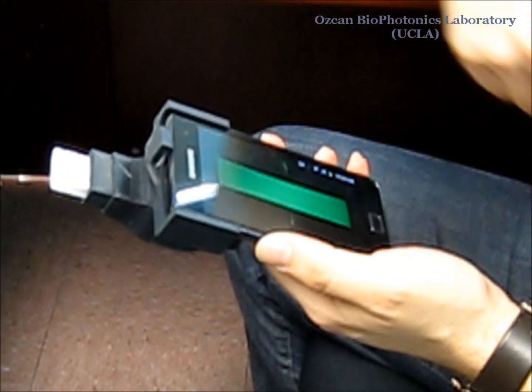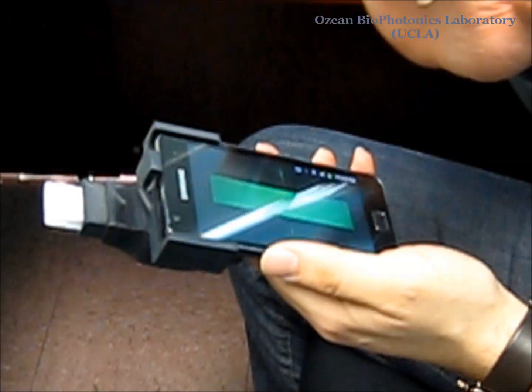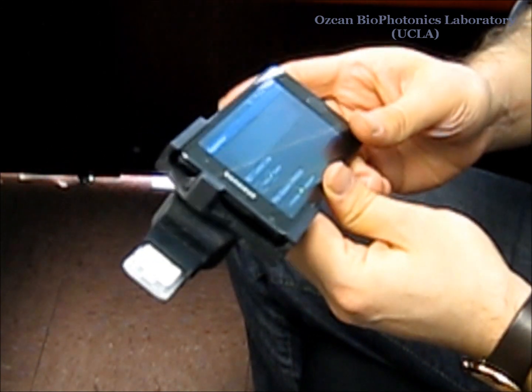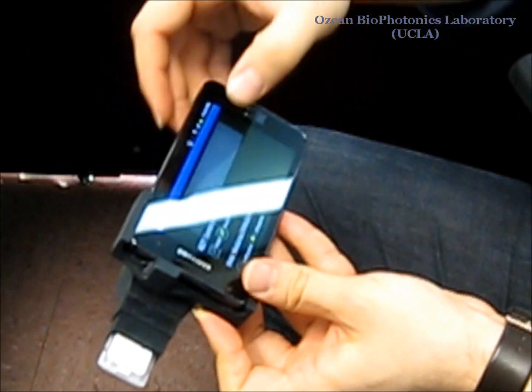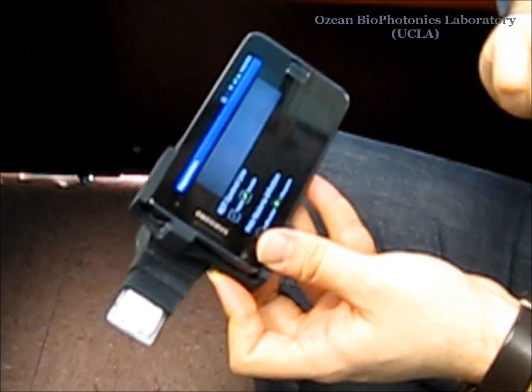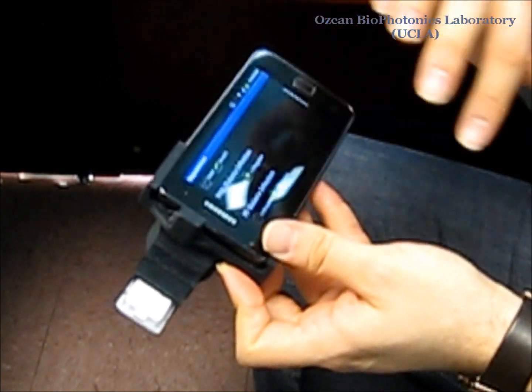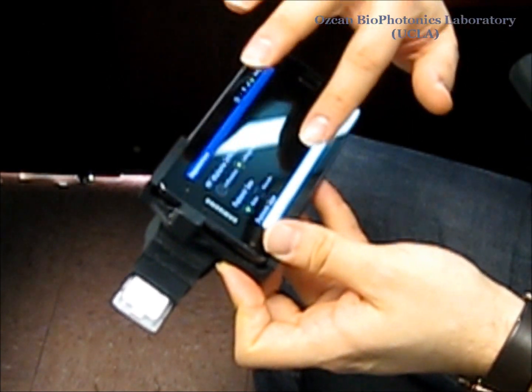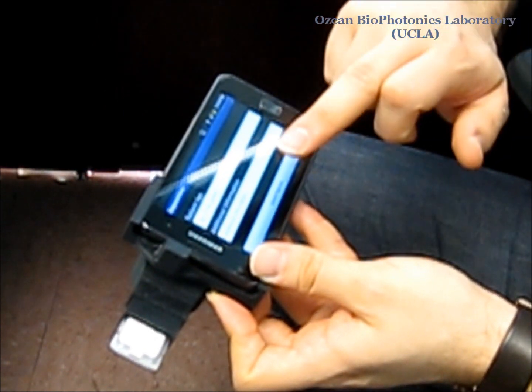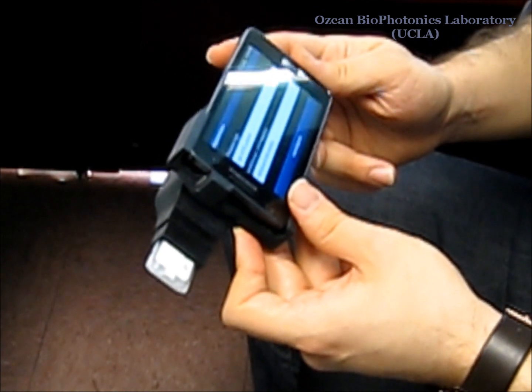You will see an enlarged portion of the test illuminated using this attachment. All you need to do is capture an image by pressing on it, which then quickly analyzes the captured image to understand, based on the strips changing color, whether the rapid diagnostic test is valid, if it's infected, and with what kind of infection. You can then enter patient information and upload the diagnosis together with the patient information.